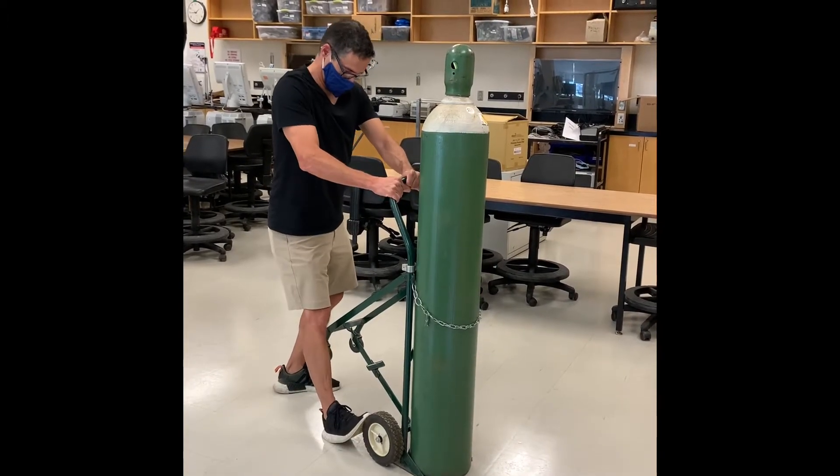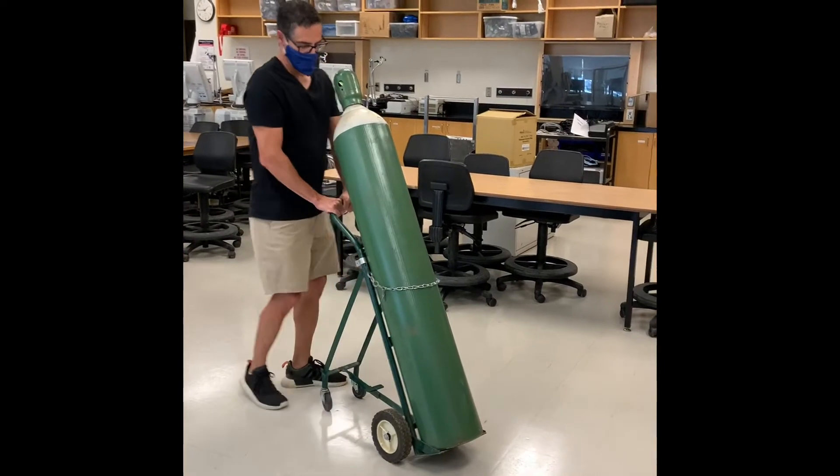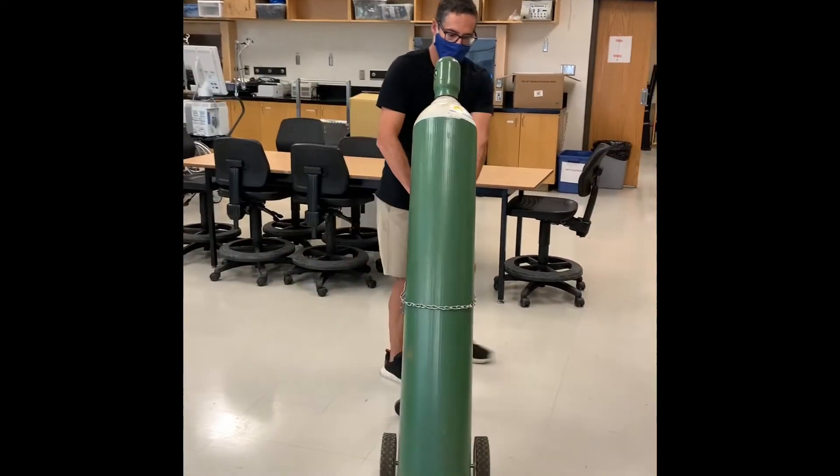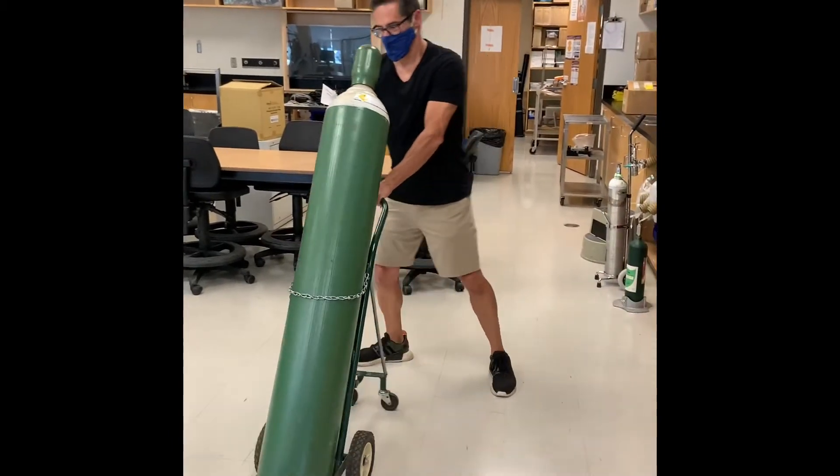They come in a cylinder truck or a hand truck, and I am pulling out the wheels in the back. You can see that it's easy to move — you just push it.